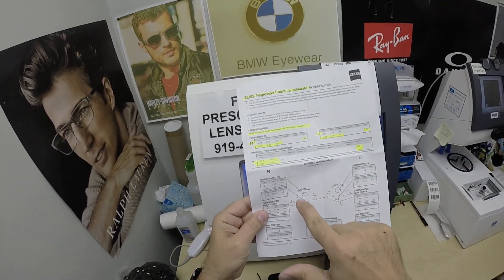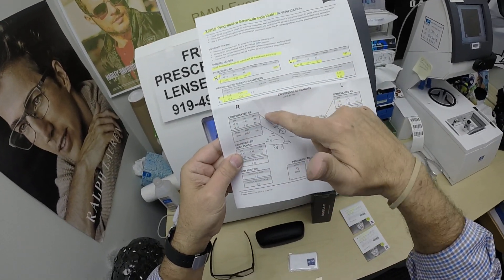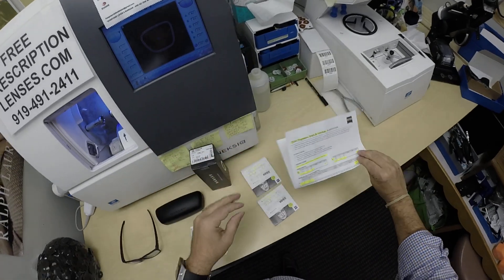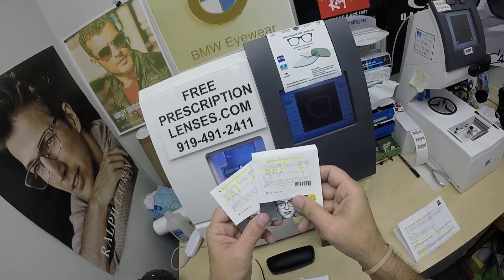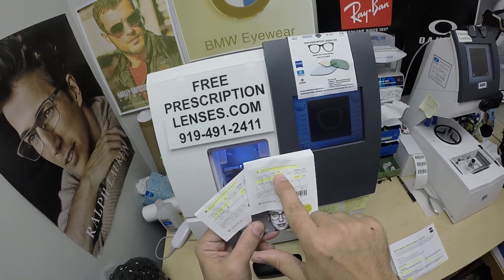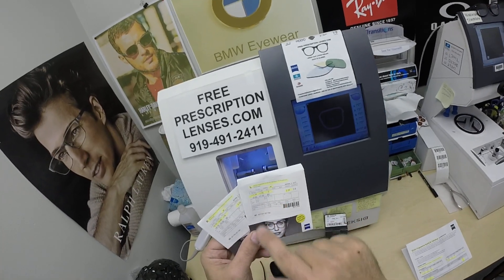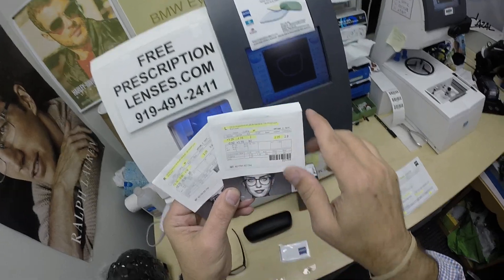And of course there's the layout charts and the compensated formulas, because progressive lenses progressively get stronger and stronger as you look through them. You're going to get the actual packets that the lenses came in from Zeiss. It says the same thing — the photo fusion extra gray Duravision platinum.